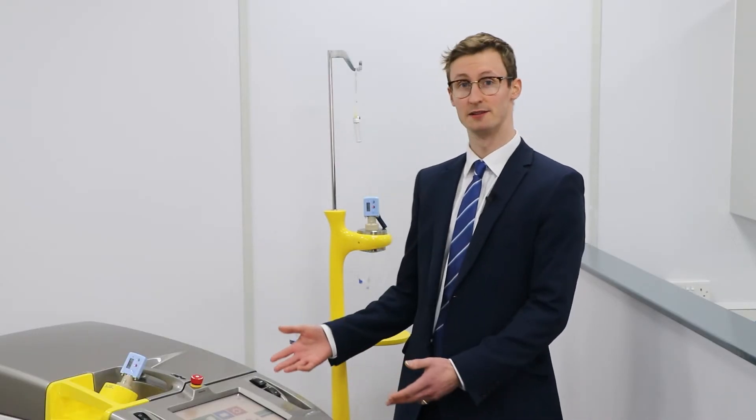This combined system is both user and patient friendly. The rad injector can help with patient anxiety and removes the need to drive the main unit into the uptake room.